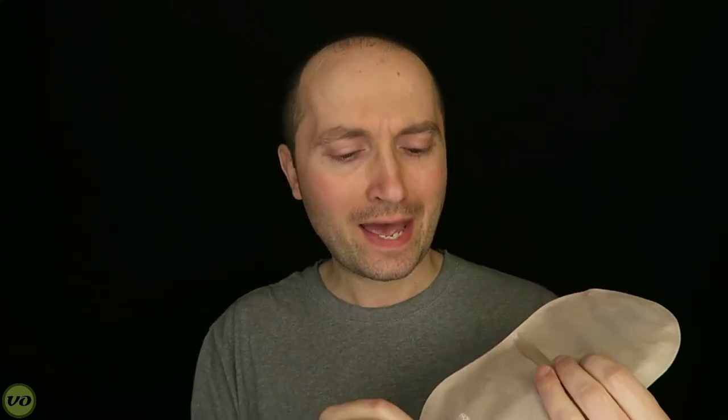The cloth material really isn't the best. I much prefer some other brands — the Coloplast SenSura Mio for example, or even the B. Braun Flexima one-piece, which has a much better fabric that doesn't fall apart. I'll talk a little more about the opaqueness of this pouch, but I'm going to turn my attention now to the back.